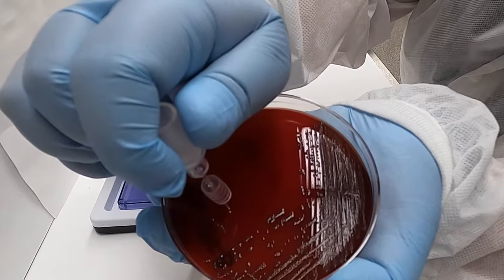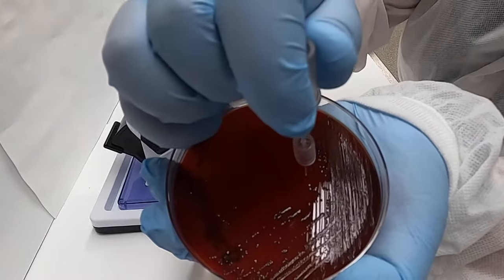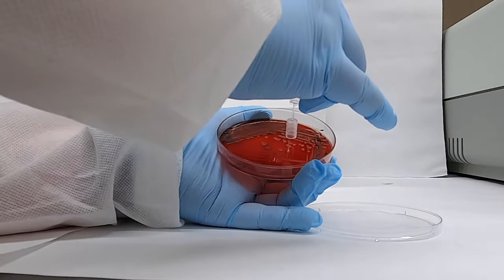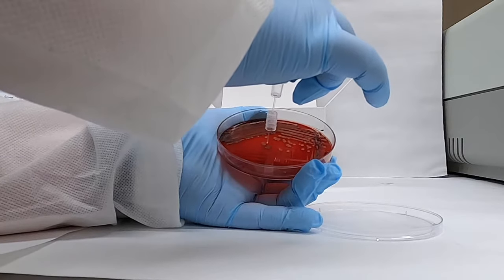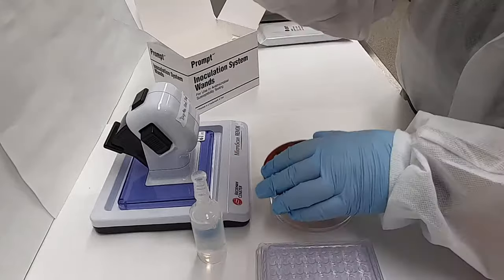We're using the Microscan system here and that allows us to use these special inoculation wands which pick up a calibrated amount of bacteria that allows us to generate our McFarland 0.5 quickly and easily.